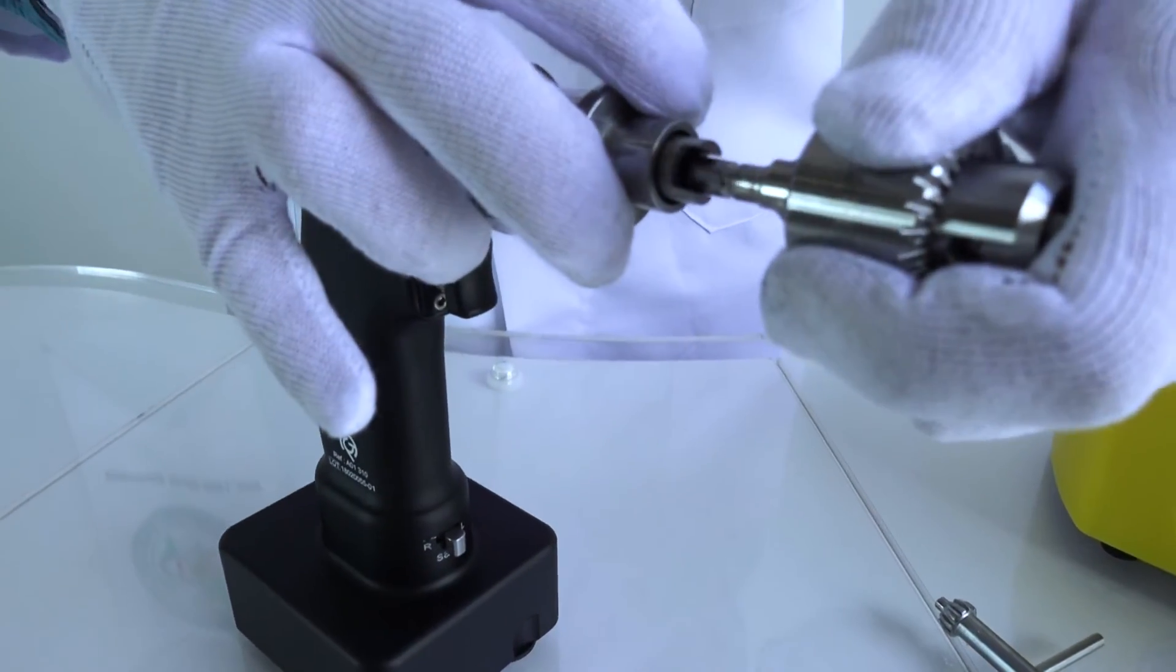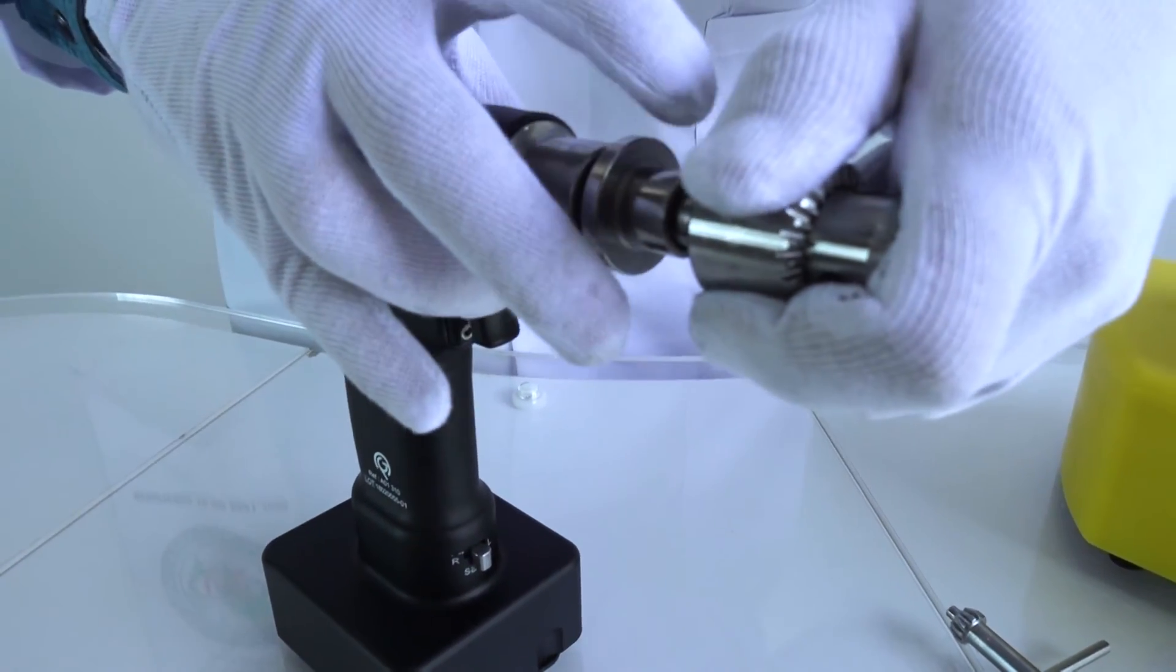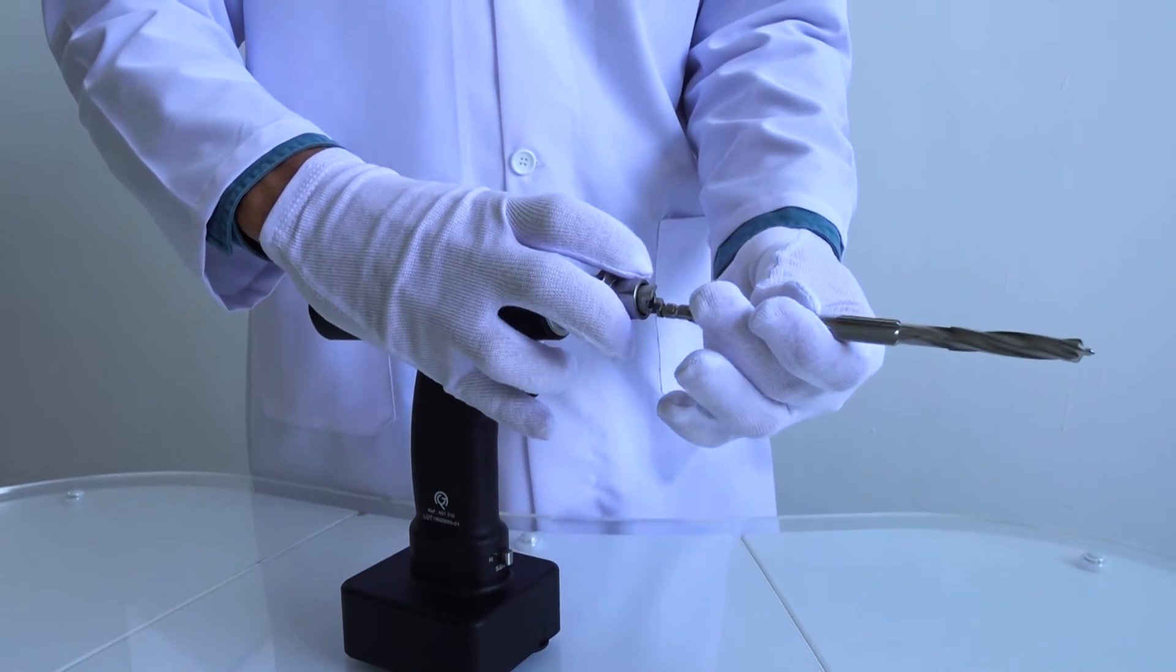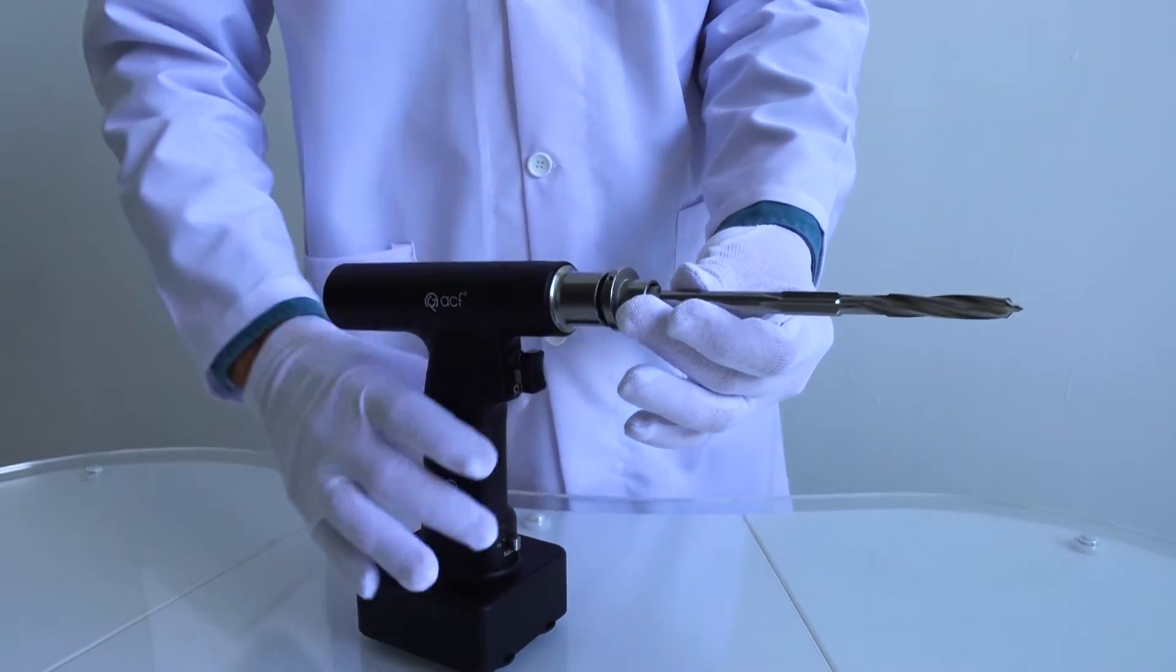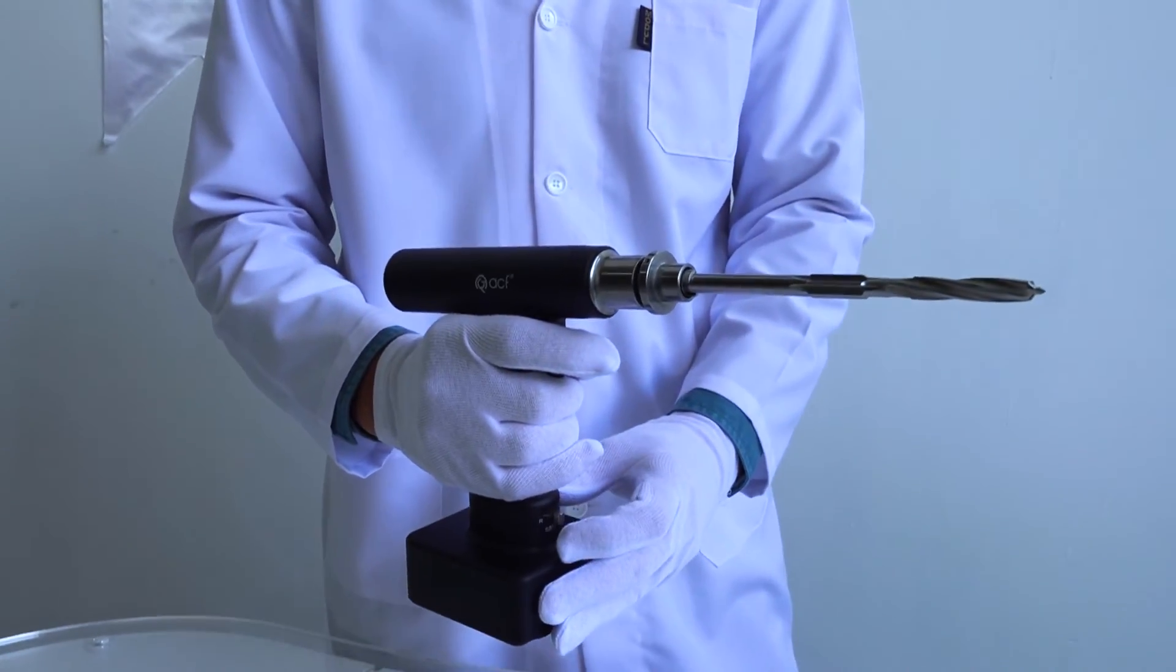Up to 8 millimeters, drill bits are attached with jacobs. Above 8 millimeters, if shaft parts of drill bits are Zimmer compatible, you can use it directly with the reamer.